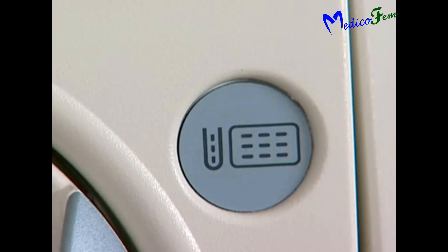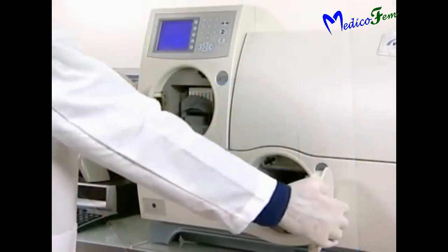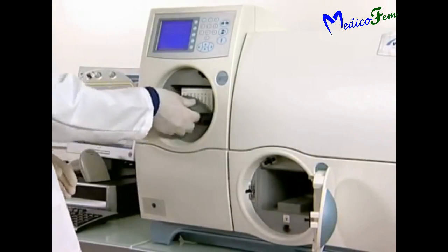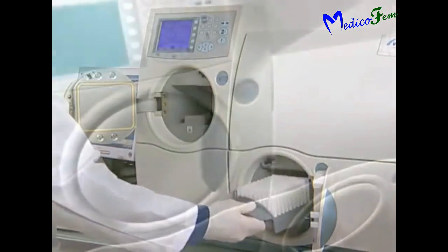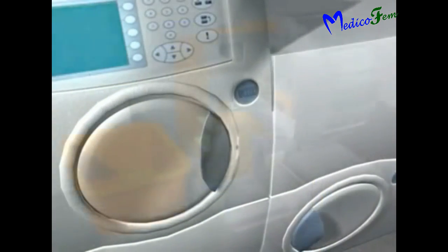Once filling is done, that is indicated by blinking blue light. First we have to open the filling chamber then open the incubator chamber. Now transfer the load to the incubator chamber. Close the incubator chamber and then close the filling chamber.